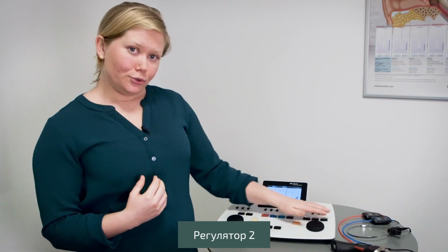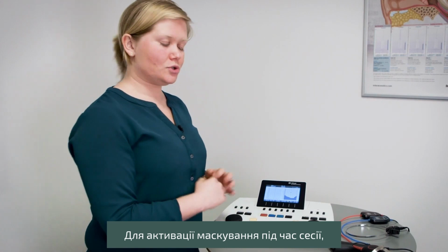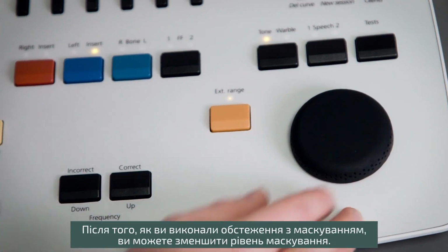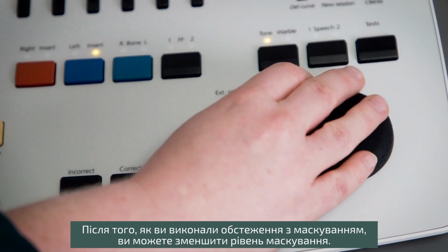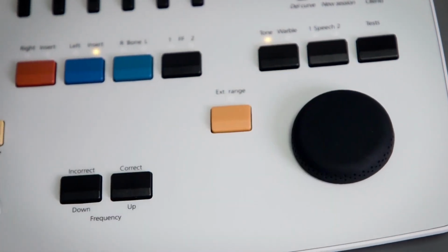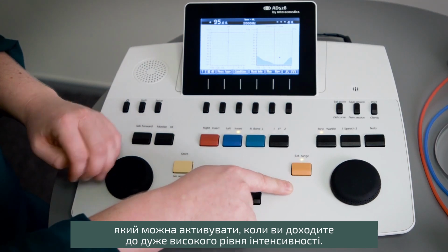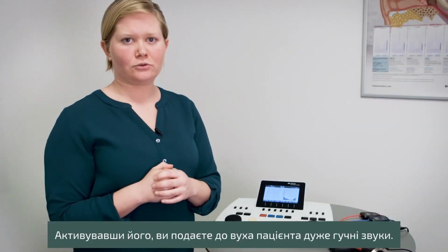Over here around wheel 2 you have the masking, and the masking can be used during the session just by turning the wheel on, increasing the level. Once you have masked and you're done, you can then decrease the masking level, and by turning the wheel completely counterclockwise, you turn off the masking. In case you have a patient that's really hard of hearing, we have the extended range that becomes enabled when you get a really high intensity, and you can then present loud sounds to the patient's ear.